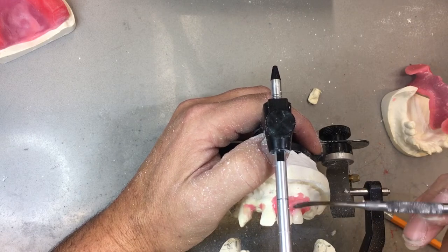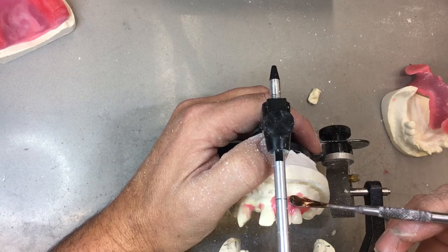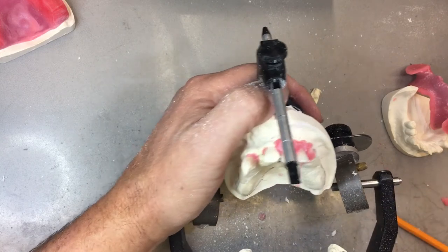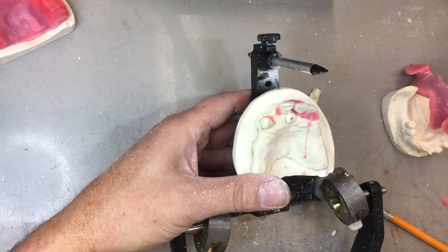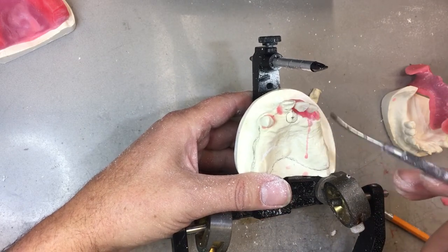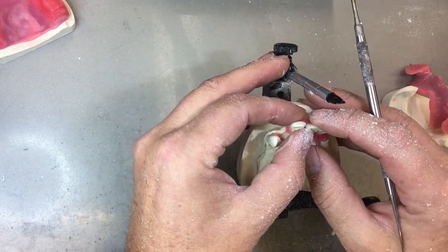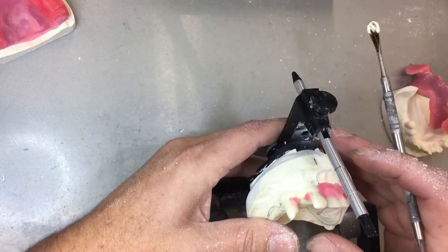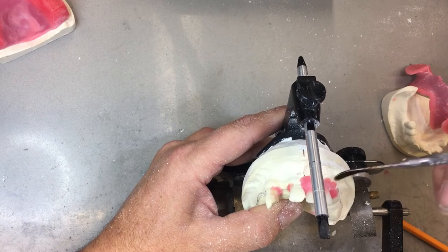The soft reline material, which is like a rubber soft material, has a shelf life of about three months but should be replaced every three weeks. So the patient has their denture refit, chasing the atrophy of the bone. No sense doing a hard reline — you'll just be doing another one three weeks later. Until most of the bone atrophy has occurred and remodeling is done, then the final reline is requested.